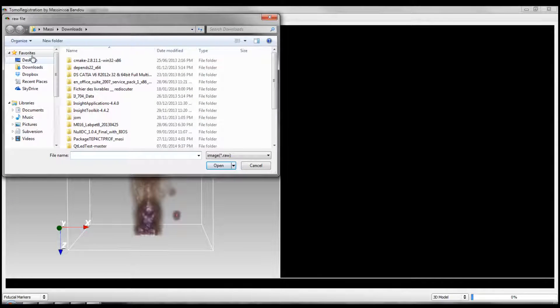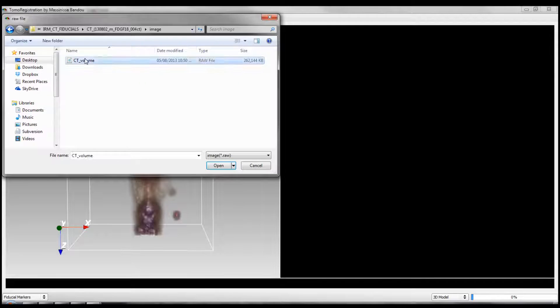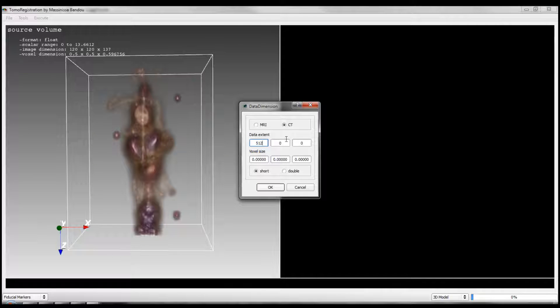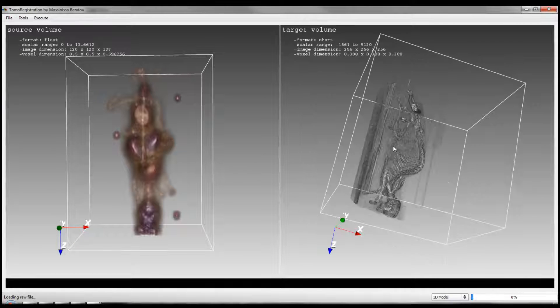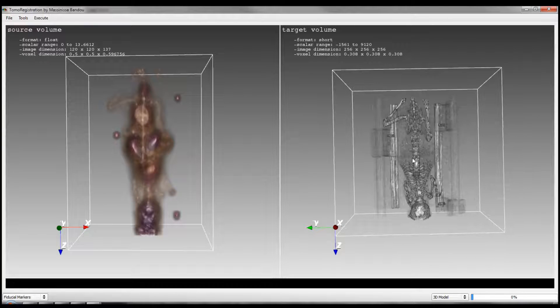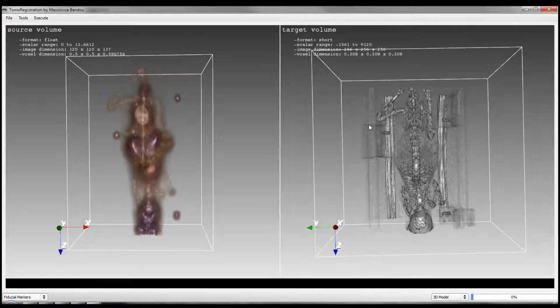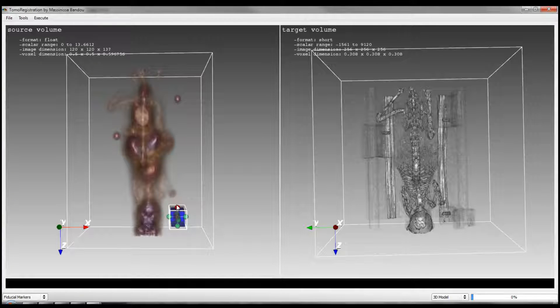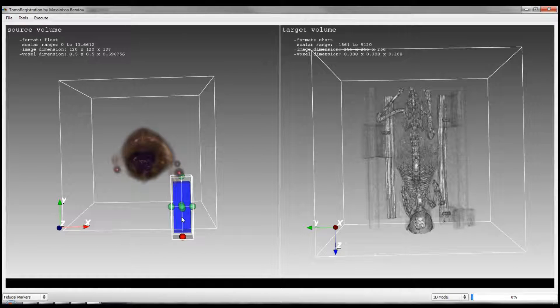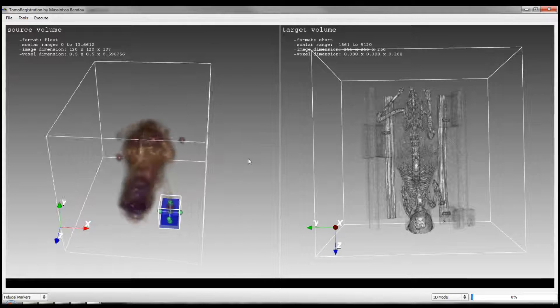We load the target. I have programmed a box widget — by pressing B on the render window, you can use this box widget to surround the fiducial markers, to fix the boundaries of your fiducial markers, and extract the volume and the centroid. We use the centroid to perform our first step, which is alignment of the two images. As you can see, I pressed B. I can use the handles on each surface to change the dimension and move through the image. You have to make sure that your box widget is inside the outlines, or it will generate an error during the registration process.